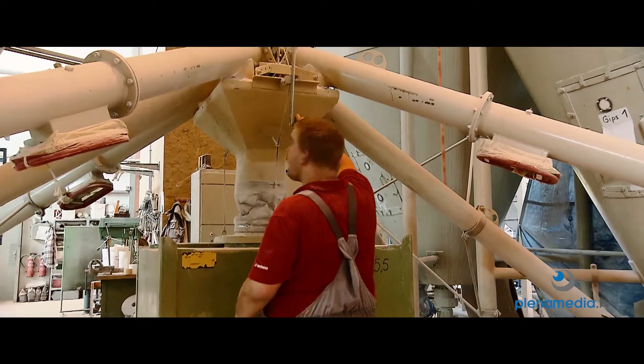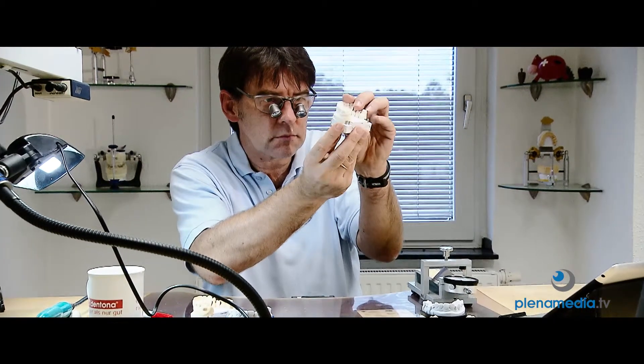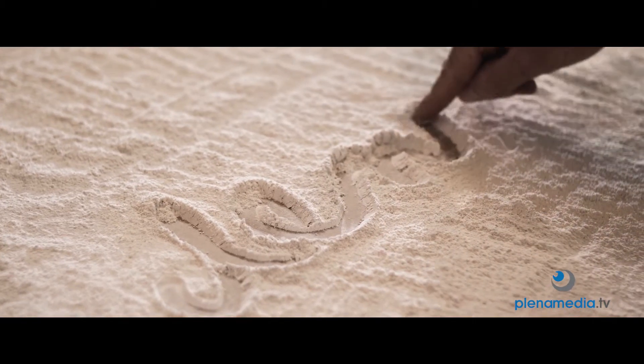And special technologies for perfect homogeneity of the materials. More than 40 years of experience and the absolute desire for perfection make your dental work successful.